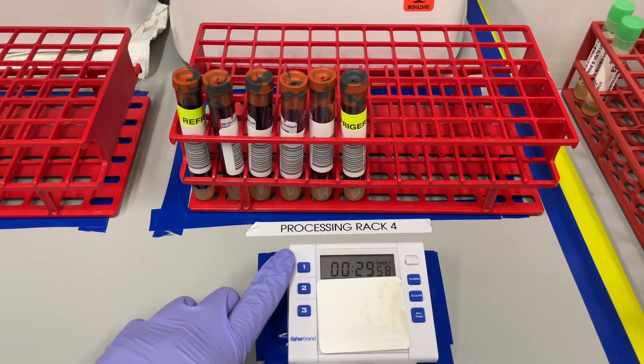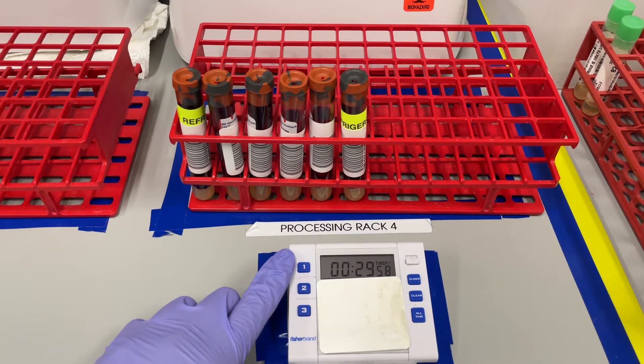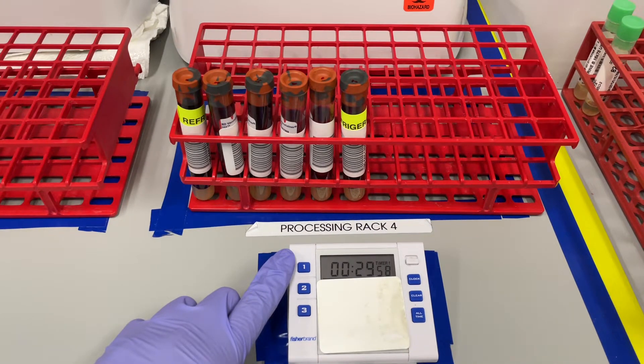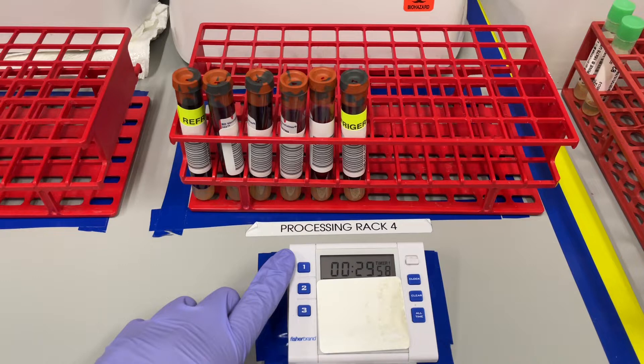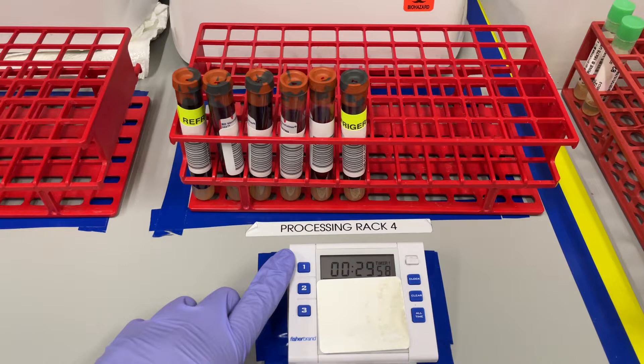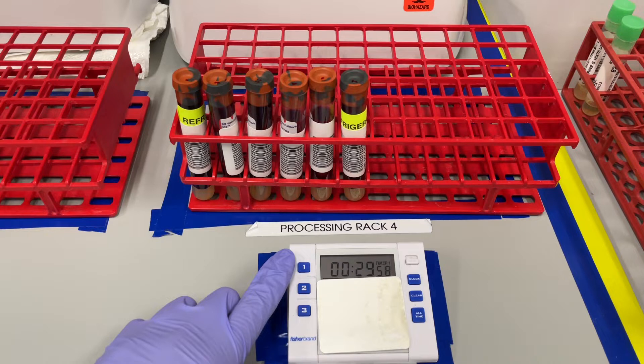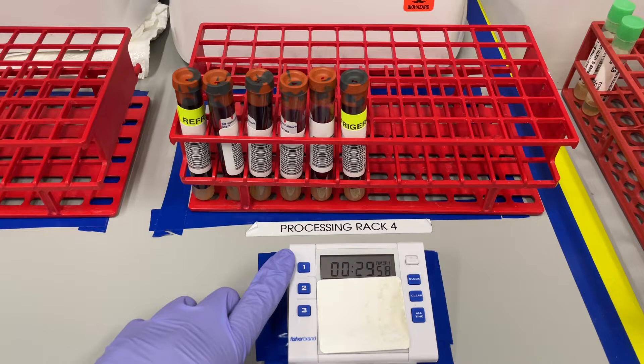Some of you are wondering why it needs to be separated. The scientist needs it separated so they can test your serum and make determinations on your serum.